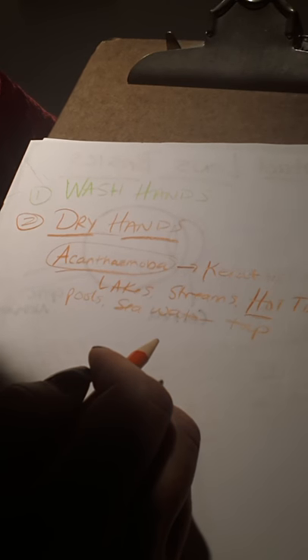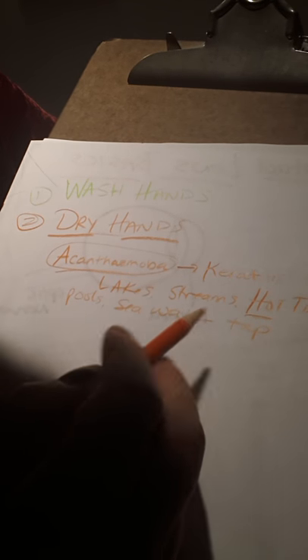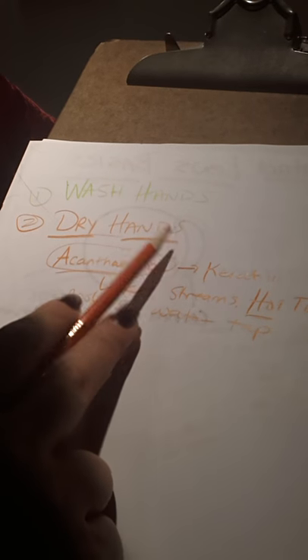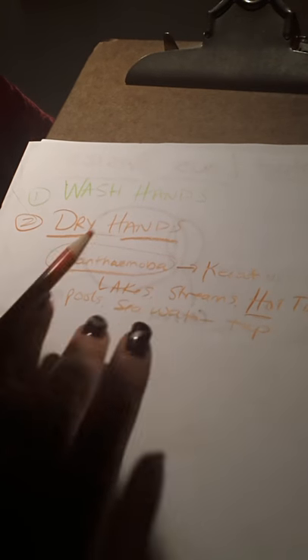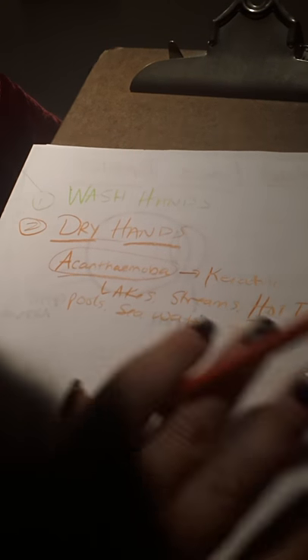Don't take a shower and splash water into your face with your contacts on because acanthamoeba can get in there. If you wash your hands and you don't dry them, the acanthamoeba could be on your hands. Once you've dried them, you've manually sloughed it off. So, it shouldn't be an issue.